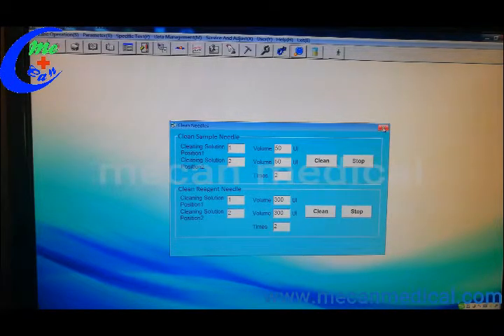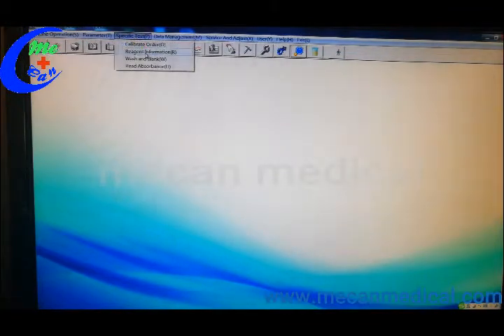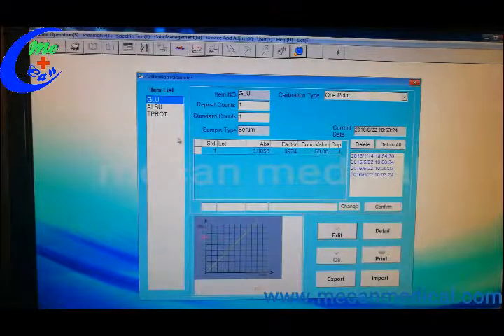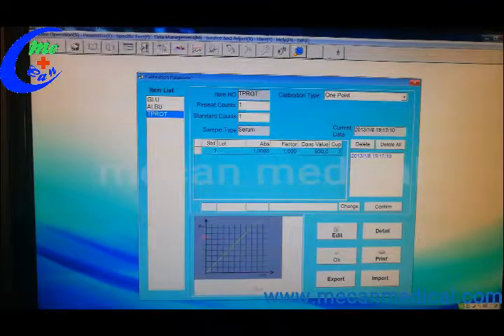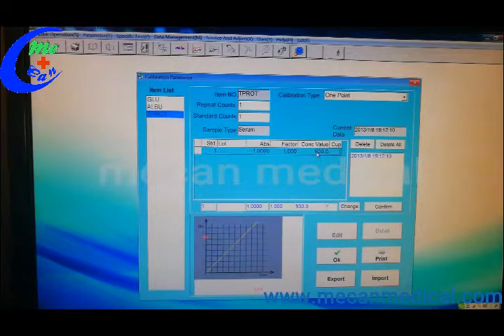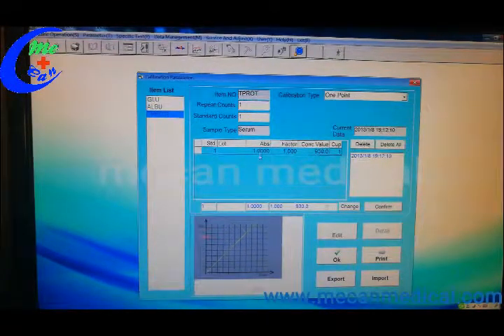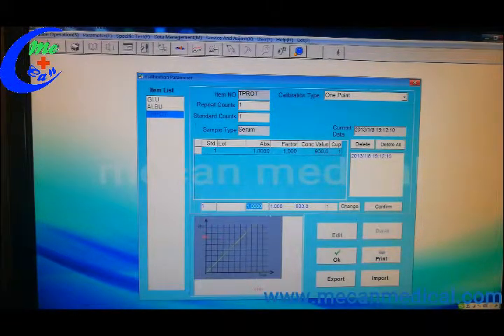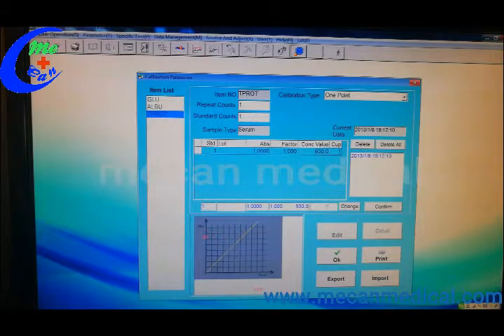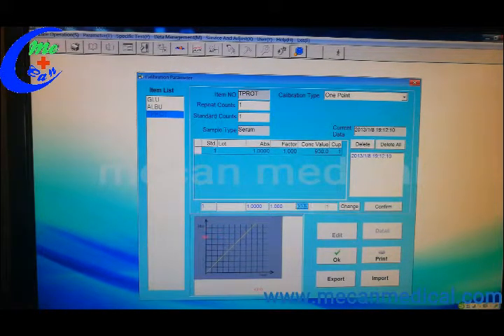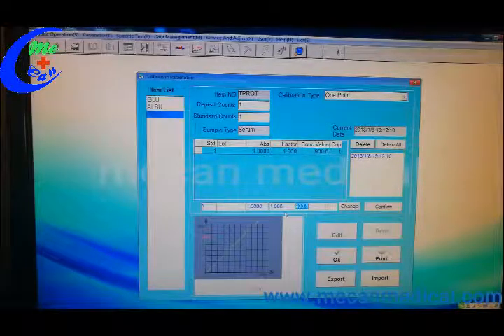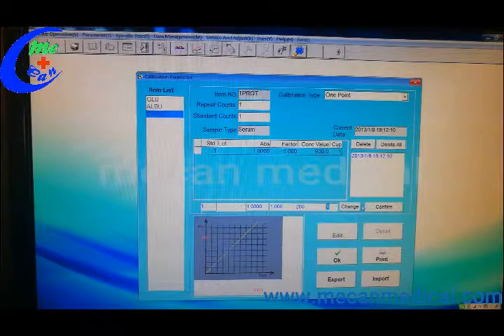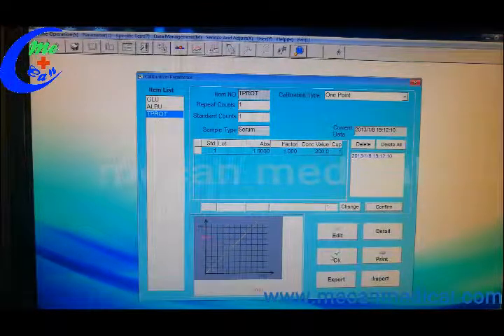Calibration order from here, calibration parameter. You can edit it. You should click the blank and make sure the values show from here, then you change the concentrate value like this, then change OK.